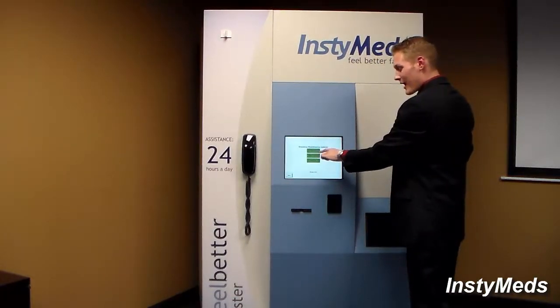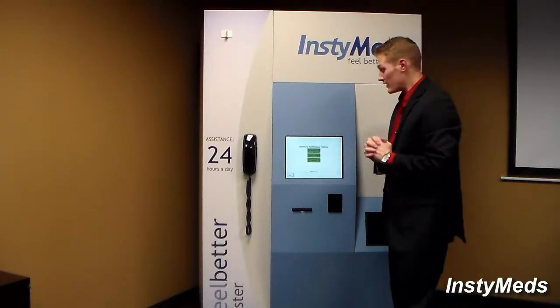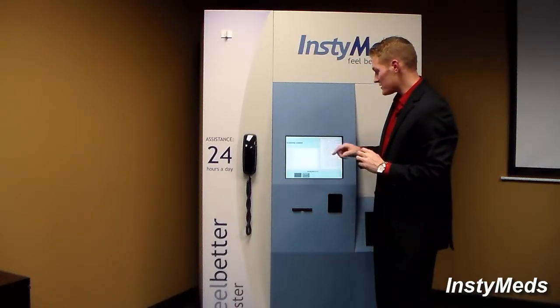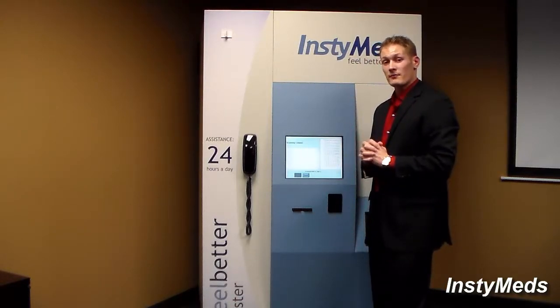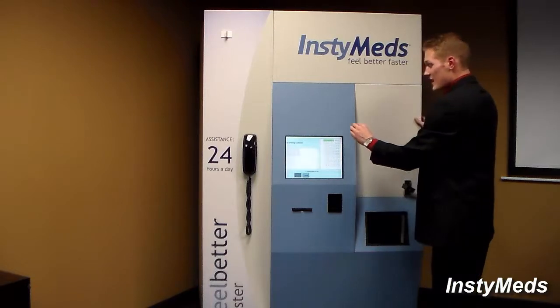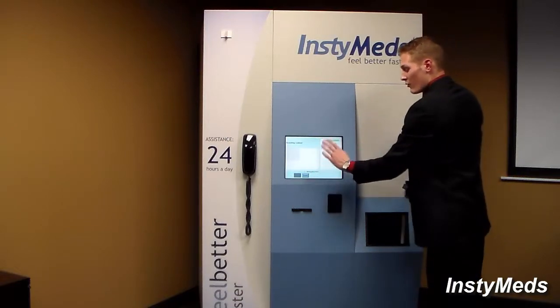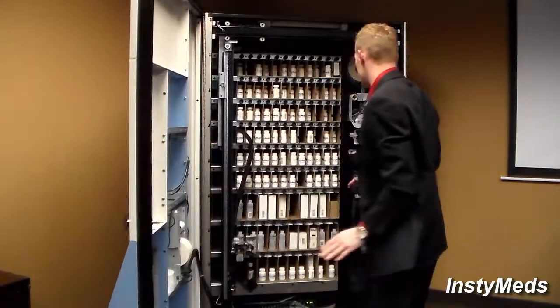The very last icon that's available is the scan cabinet. The reason why I left it as the last item to touch on is because it's really the most critical item. Because what this does, by pressing this, is update all inventory. So that way, when a provider goes to prescribe a medication, they would always see the correct and most updated inventory. So what will happen after about 2 to 3 minutes is the scanner will go through every single location to update the inventory. And then once it's completed, all the data is updated.